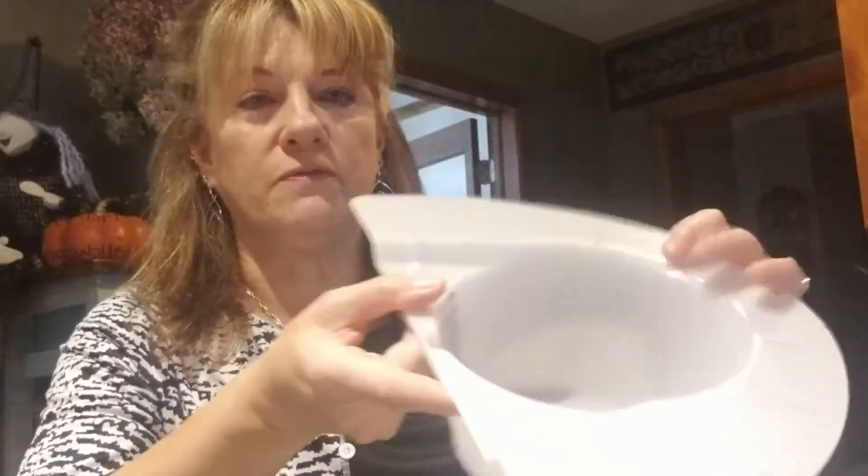The hat goes in the front like this, then the lid comes down. The same applies for a commode. Once you get the urine in the container, there's a little spout so it can be poured into the cup. Very neat to have.